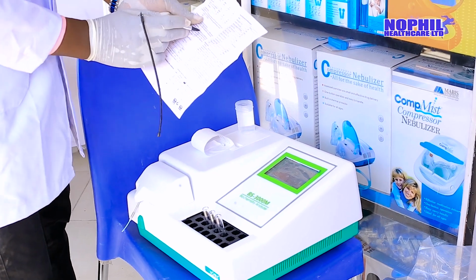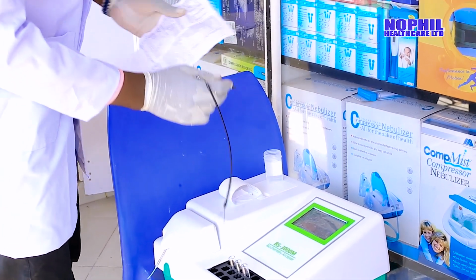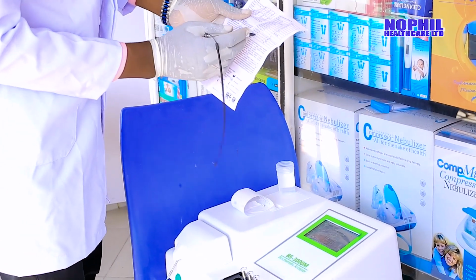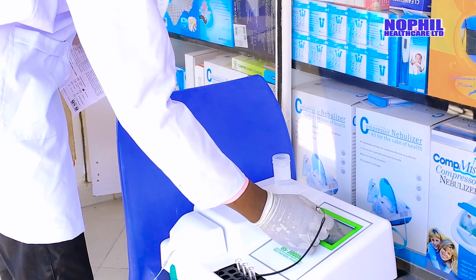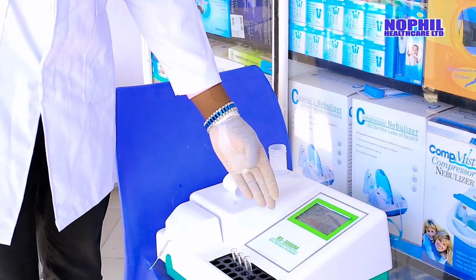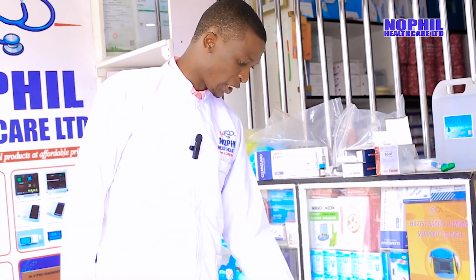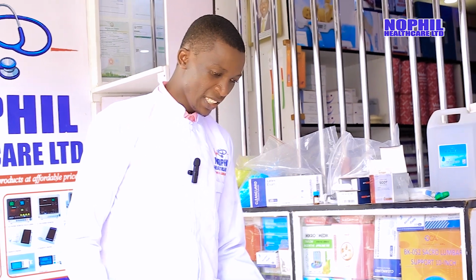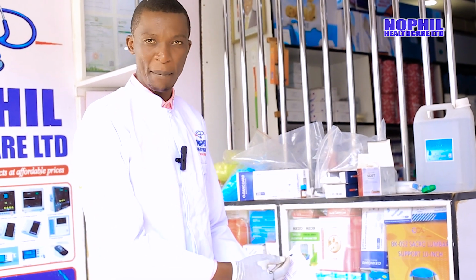Then in the instruction manual, you can find the normal ranges. Normal low in this case is 0 and normal high is 40. In this case, you just click 40, that is the normal high. So if you find that the sample you are testing is not within the range of 0 to 40, that means the patient has an underlying complication associated with the liver, because this is one of the key parameters of the liver function test.